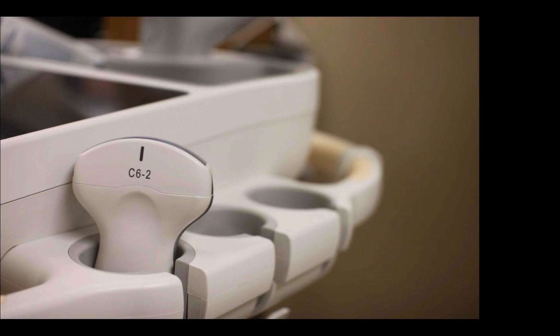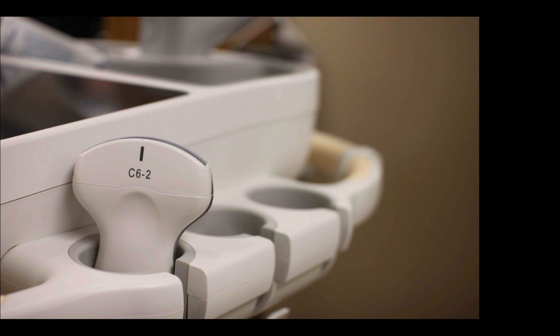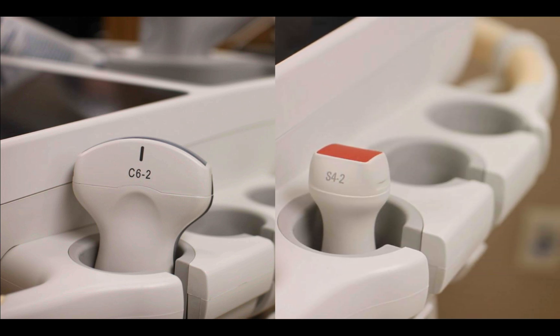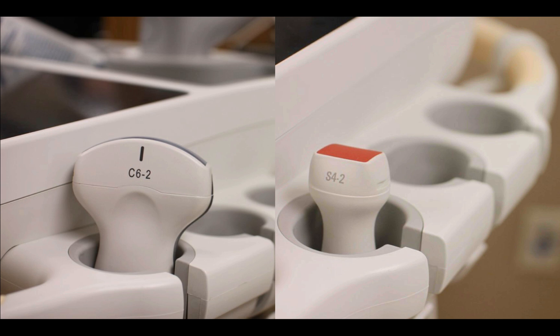If you're looking in the abdomen, your probe of choice is probably going to be the curvilinear transducer in the vast majority of cases. If you're looking in the chest, the phased array transducer is going to get you a better image.